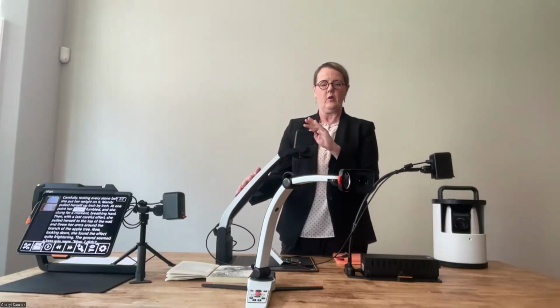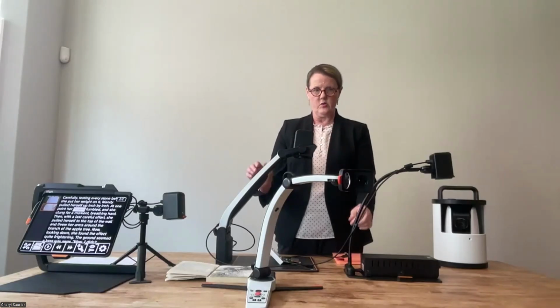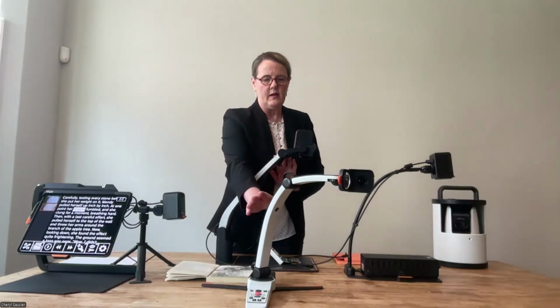And then when we talk about the Magnilink Pro, if you have people who need that powerful camera, this is a good solution. And again, it'll connect to lots of different platforms. We think about this for more professional environments. There could be some school applications, but we also think about it for hobbyists and professionals who need a lot of power for detailed work and a lot of space under the camera to be able to execute that detailed work.